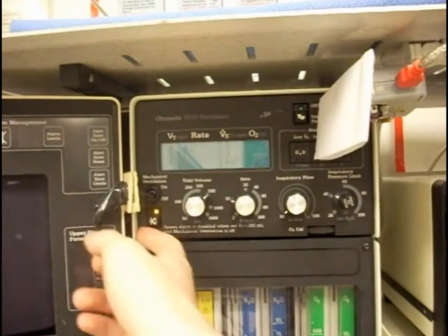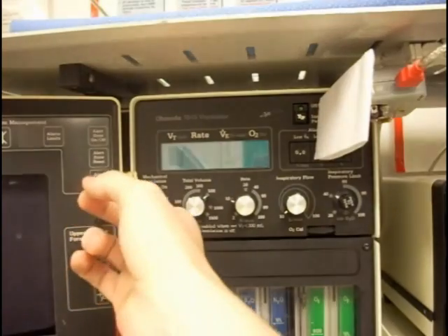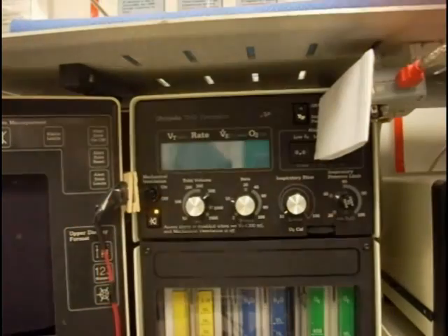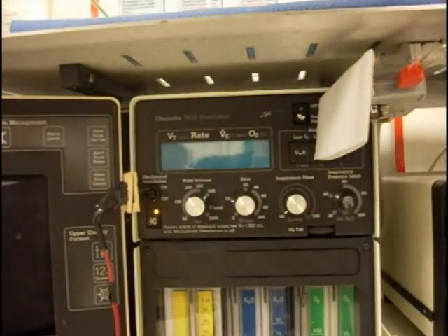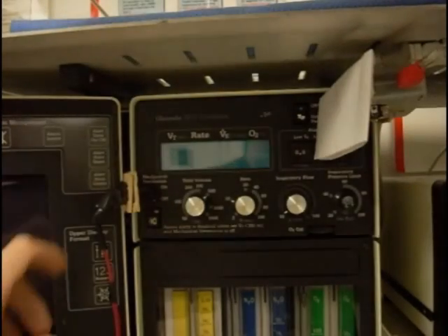The ventilator controls a patient's breathing when under anesthesia. The ventilator valves open and close to help the patient breathe. It also shows how the switch activates the automatic ventilation.